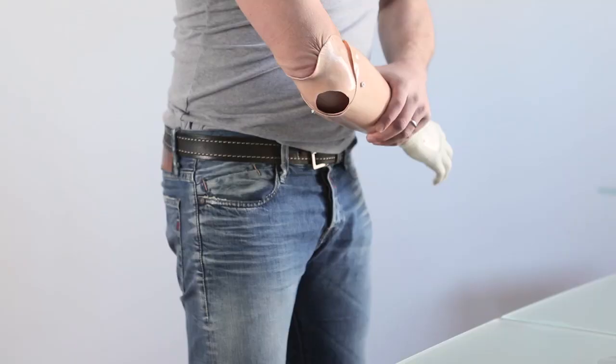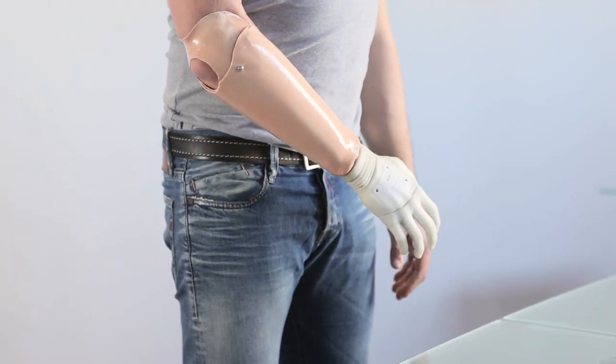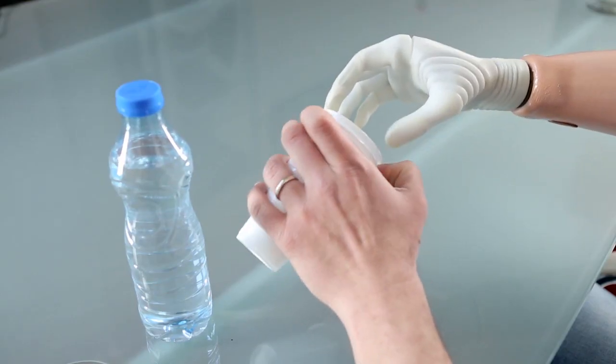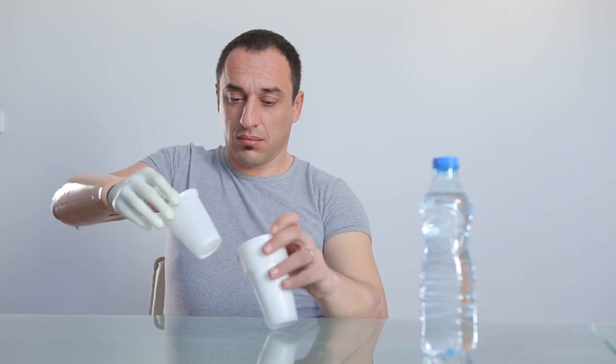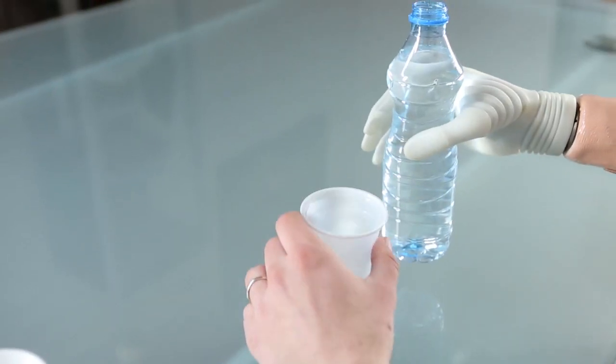Hand amputation is a dramatic event with long-lasting consequences in everyday life. Though modern myoelectric prostheses can restore the missing motor functions to a degree, the lack of somatosensory feedback has been acknowledged by users as a major drawback.